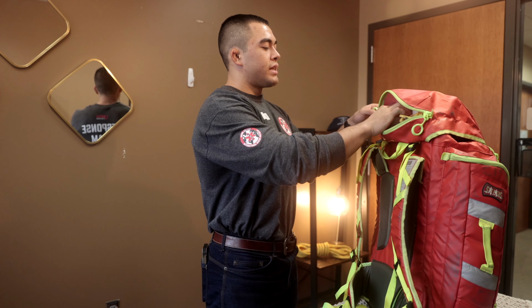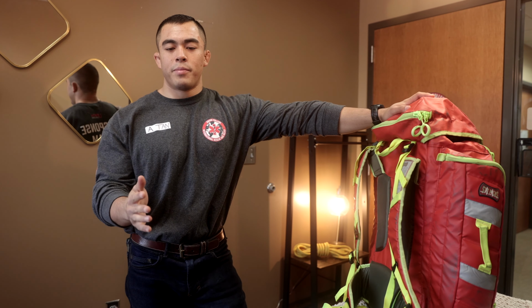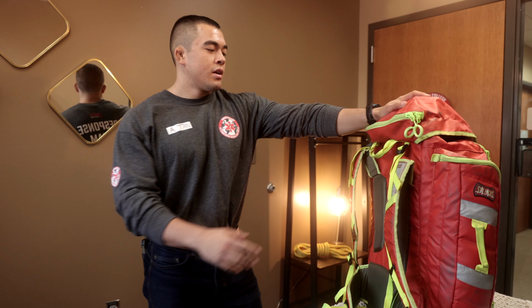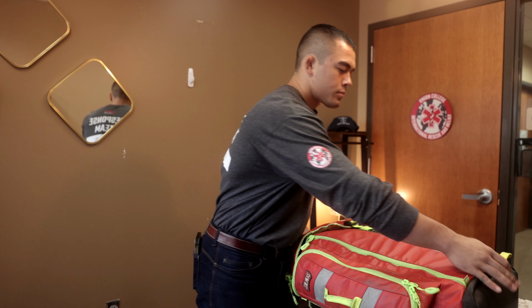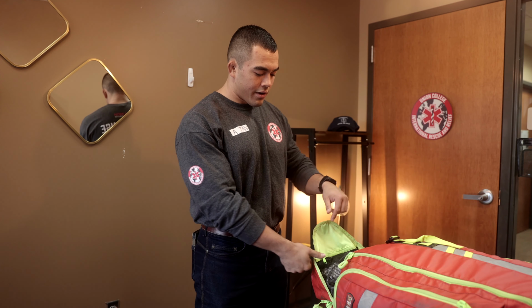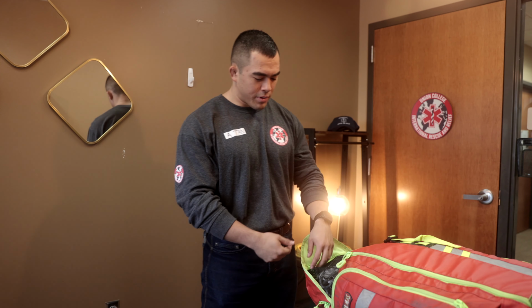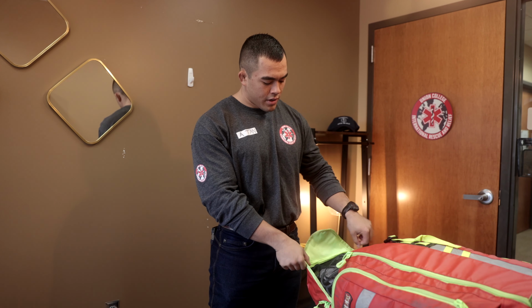Within our medical team, we took it upon ourselves to really incorporate PPE as being the most important thing, keeping each other safe and keeping our team safe. Moving on from that is our very top compartment. The cool thing about these G3 Stat Packs, the backup model specifically, is that it has what I believe is called a Claymore pouch, as a lot of bags call it, but it's just a clamshell opening up where you can access it pretty easily from the top.